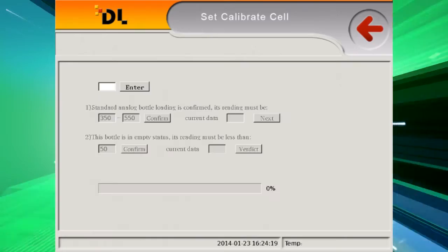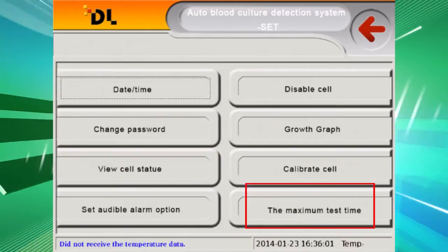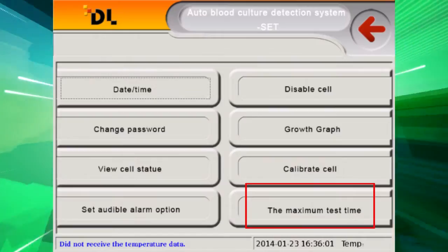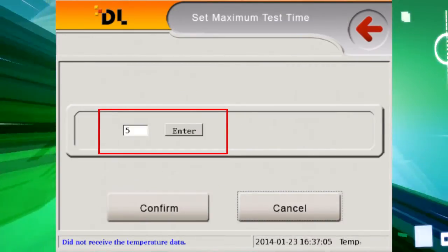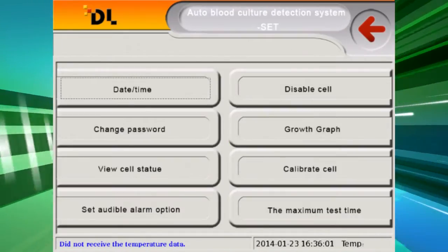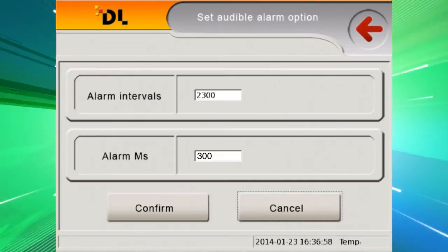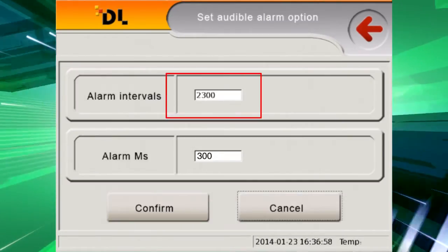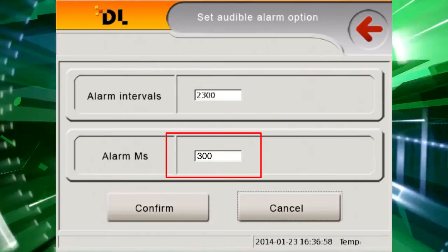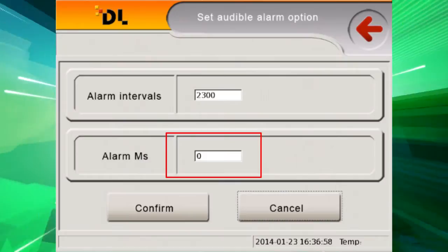Module quantity is set before delivery. The culture day can be set — system default is 5 days, and users can reset it as needed. The alarm sound frequency default is 2300 and the sound duration default is 300. Setting the value to zero means no sound.